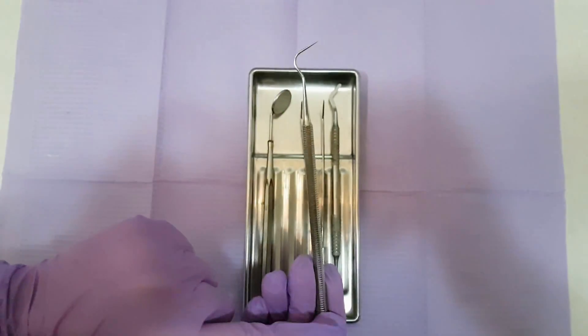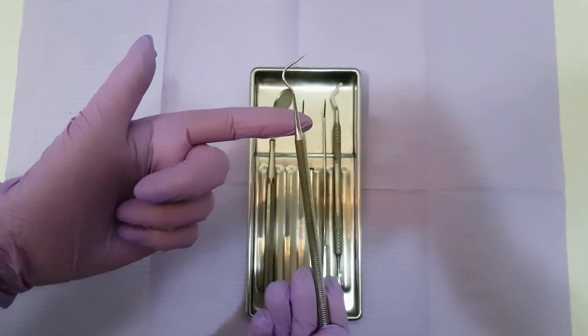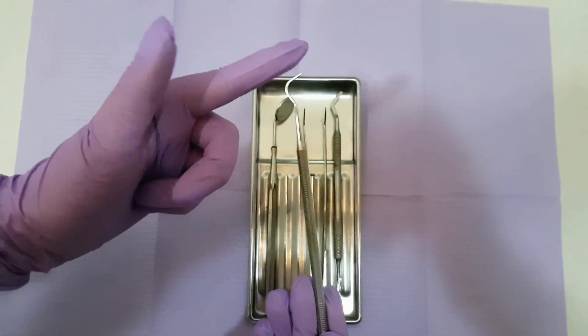This is a dentist explorer. It has a handle and a sharp end, and this instrument is mainly used to detect cavities on a patient's tooth.